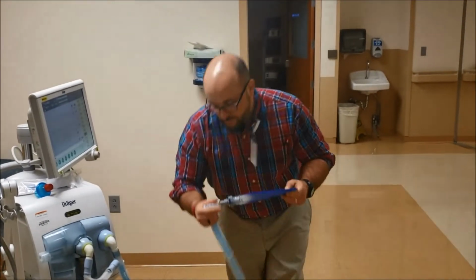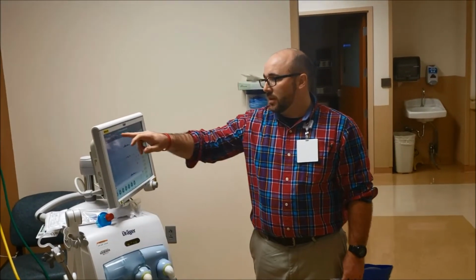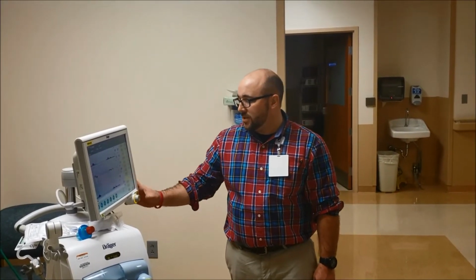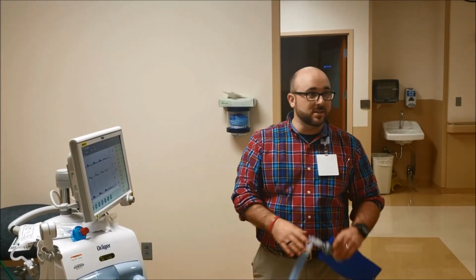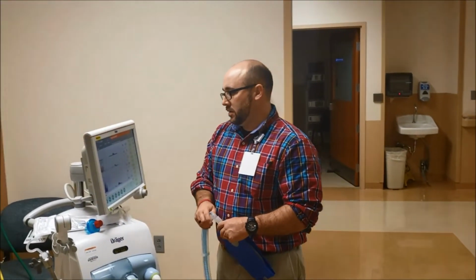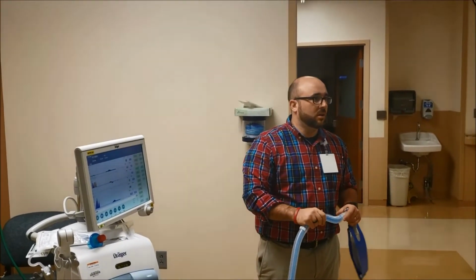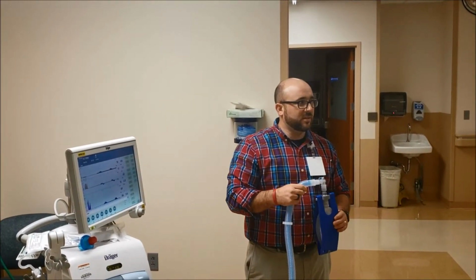So let me get it all back to normal here. It's a great button, but it just comes with that one caveat. So we're back doing it again. Let's say we go to suction, hit the button, and somebody calls me, I need to go over there. I've hit this button, so I need to cancel it. So you just go in, touch it, confirm it, and it cancels it. Then if they pop off when you walk away, it's going to alarm. So, any questions about that at all? Has everybody done the touch, confirm?